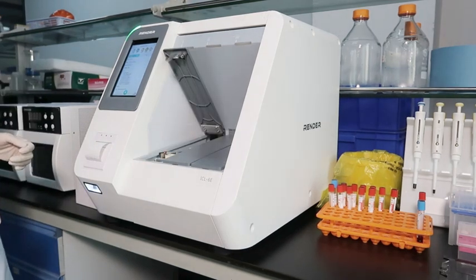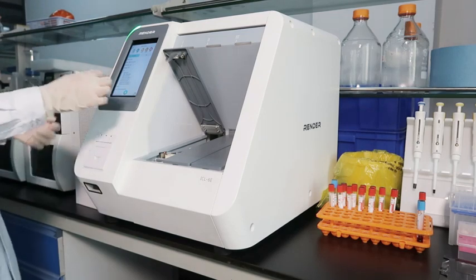Fifth, output the result directly or via printer.